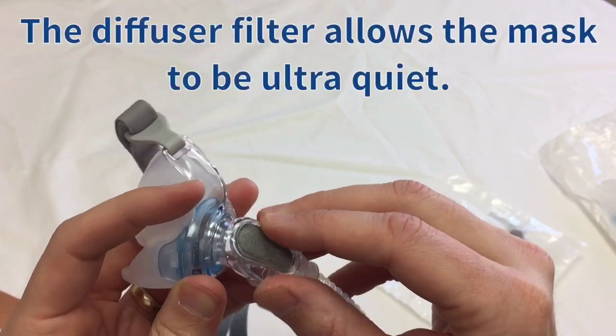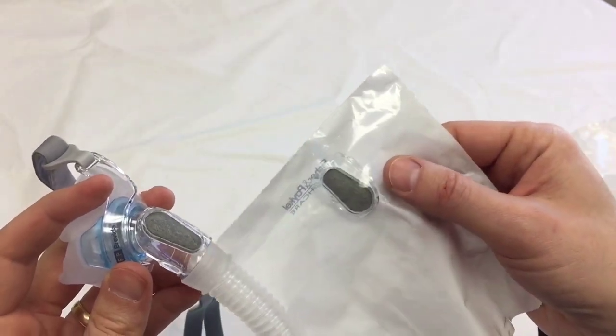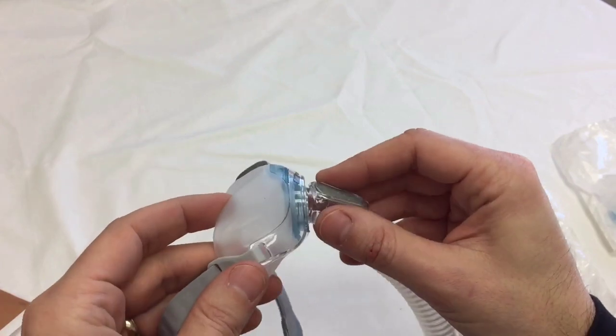But using it does make it ultra quiet and prevents air from blowing towards your bed partner. It just really disperses the air nicely, and you get an extra washable diffuser filter also.